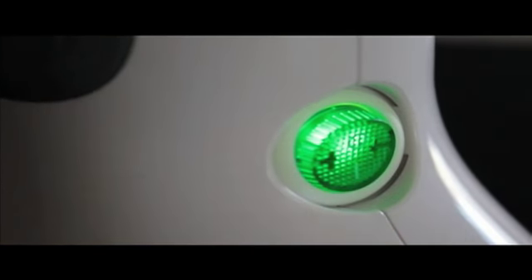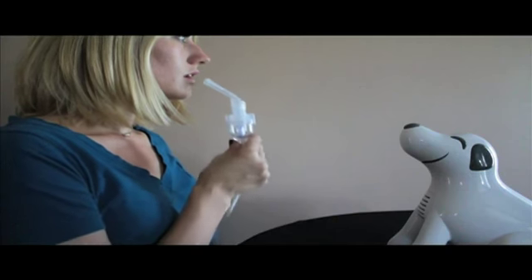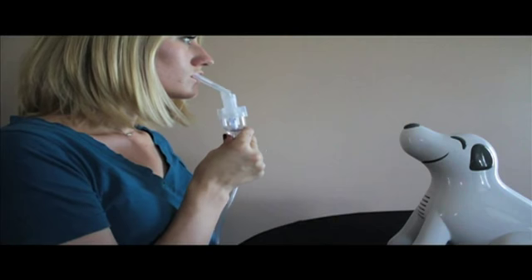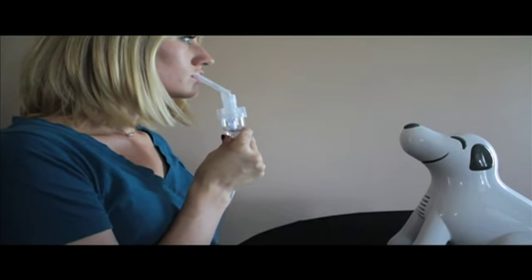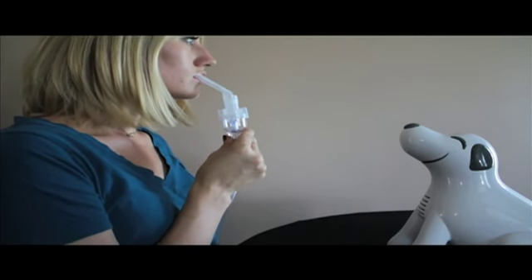Press the power button to the on position. Hold the nebulizer in your hand and start your treatments according to your physician's or therapist's instructions.